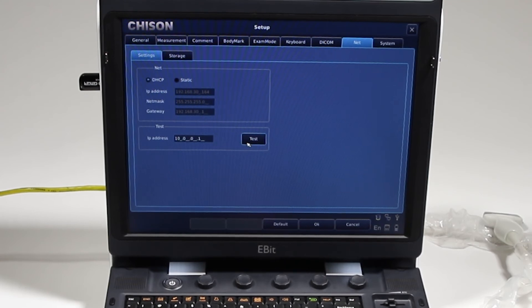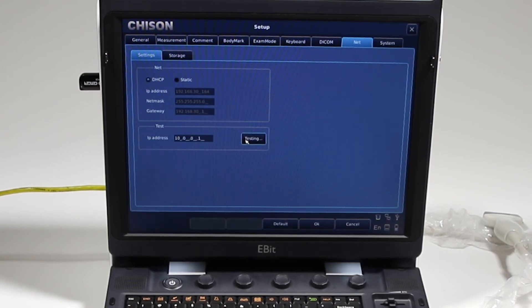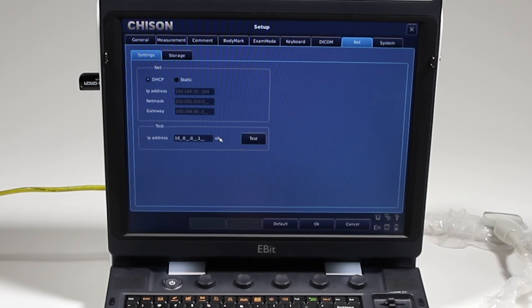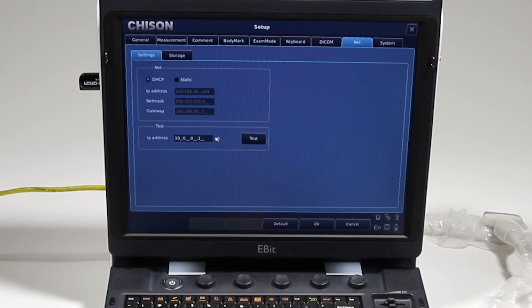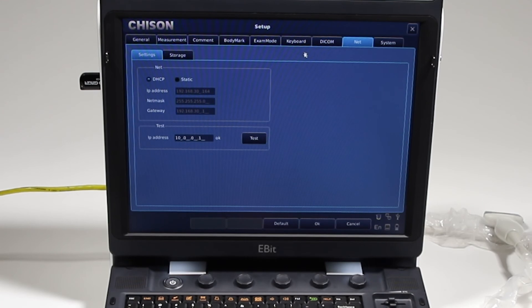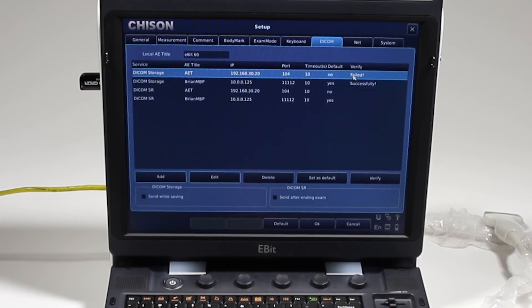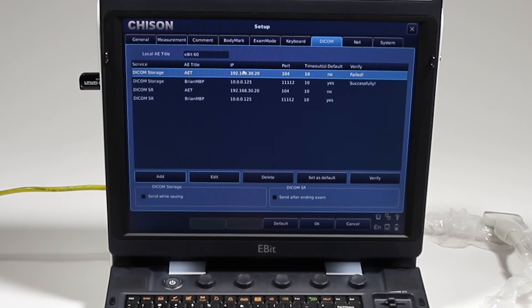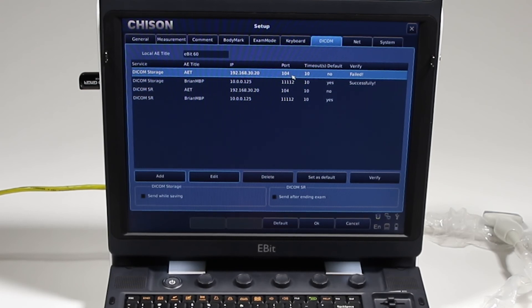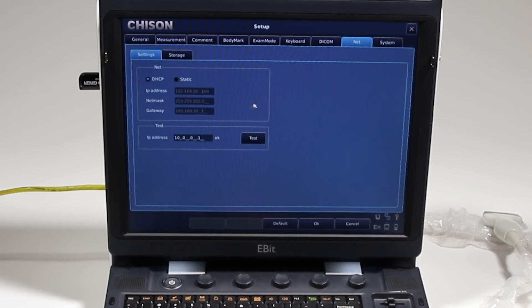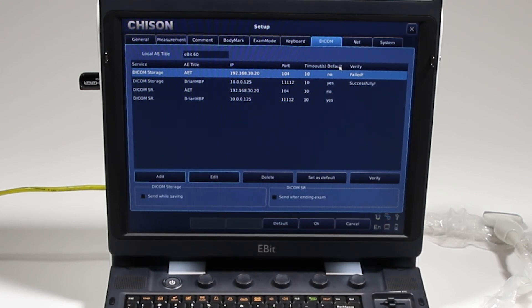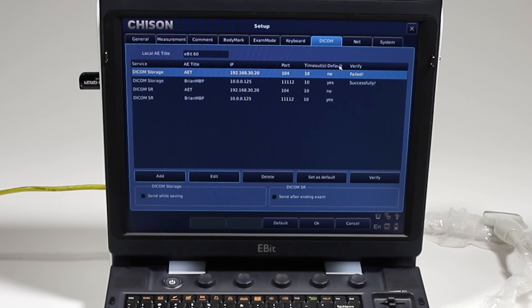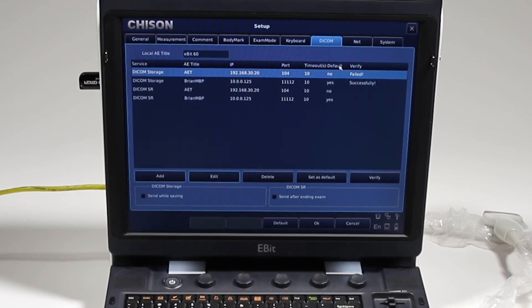And it says okay. So this means I am connected to the network. There's many times where your DICOM is failing and this is the first place you're going to check. First, you want to check to make sure that you can ping. But then if you get failed here, it means something is wrong. It could be your port number, your IP address, or your AE title. And typically 99% of the time it's going to be one of those issues there, and you have to check and double check with your IT professional. Because if you are connected to this and it says okay, and the DICOM is not sending, it is not a problem with this machine 99% of the time. So you want to check with them, make sure the port is, and then they can check their log to see if it's coming through.